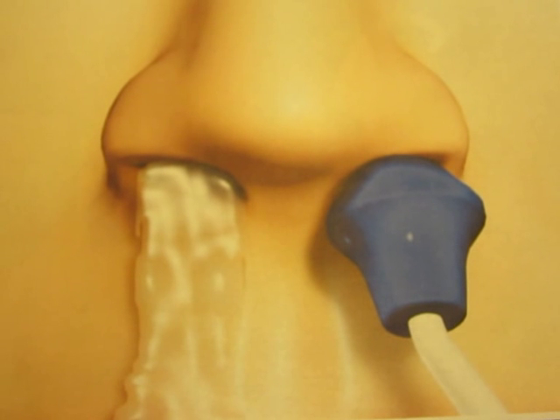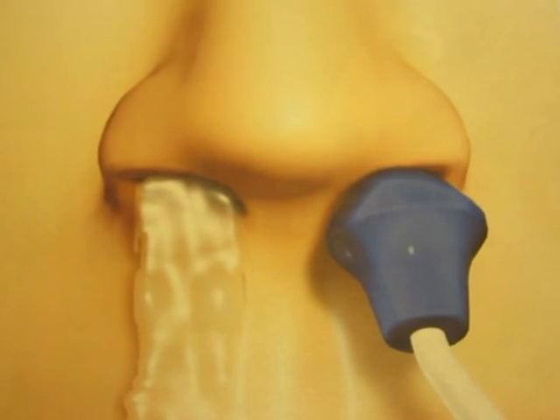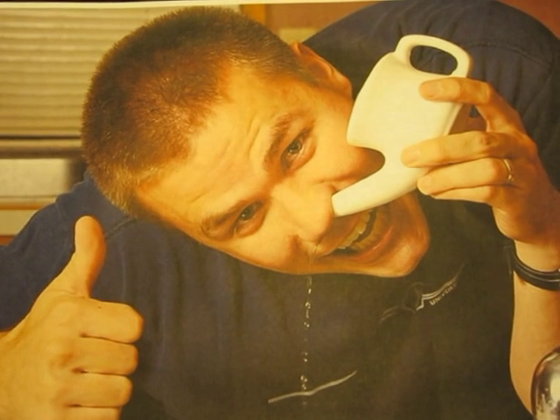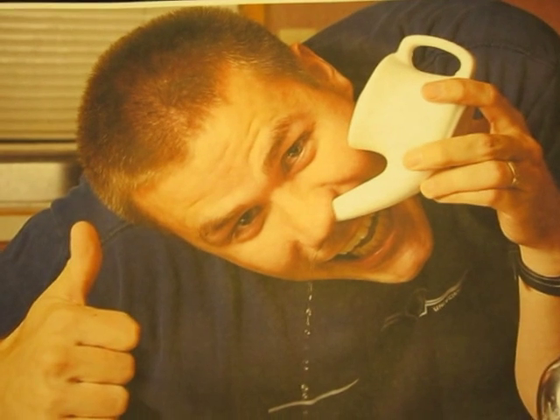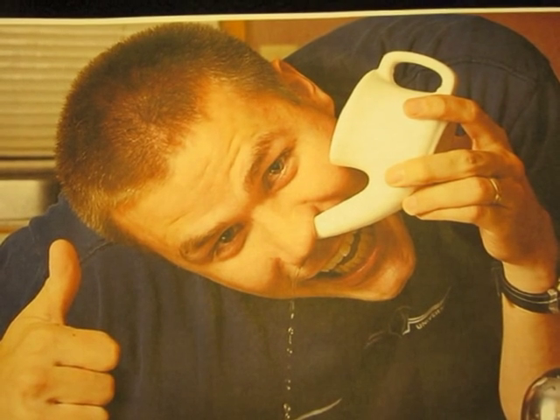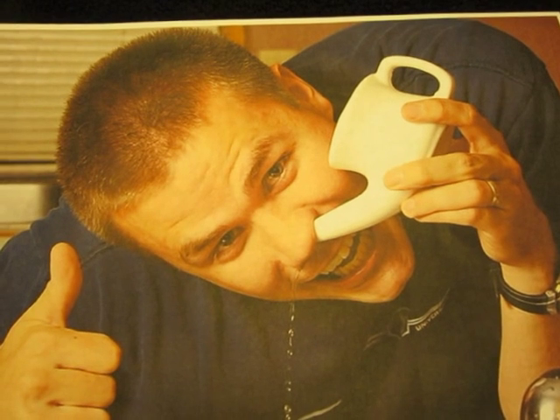Many specialists also advise that instead of a steady stream of water, a pulsating water stream will work better. There are a number of devices to provide a pulsating action. In the following video I will present what works well for me. The information has been obtained from my doctors, so I am not making anything up. I don't think I will be showing any procedure or equipment that would be harmful. Still, you should consult with your own doctor before using any nasal irrigation.